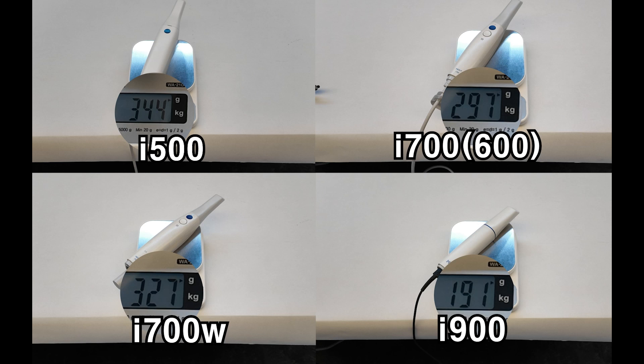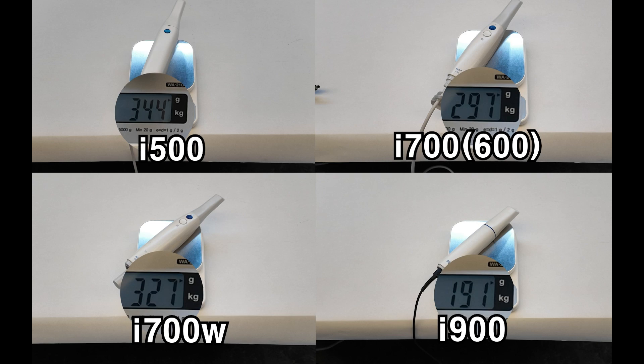However, compared to the I-700 with the cable connected, the I-900 is 100 grams lighter. This 100 gram difference, equivalent to the weight of a small apple, an orange, or a bagel, provides a noticeable difference during use.